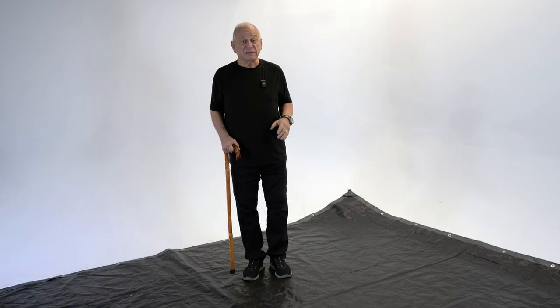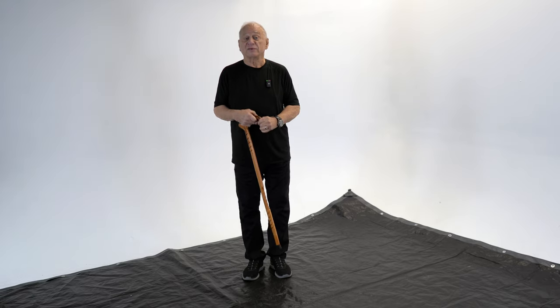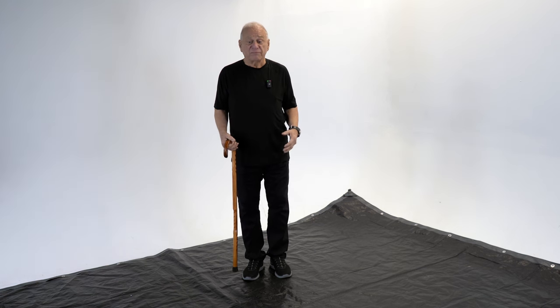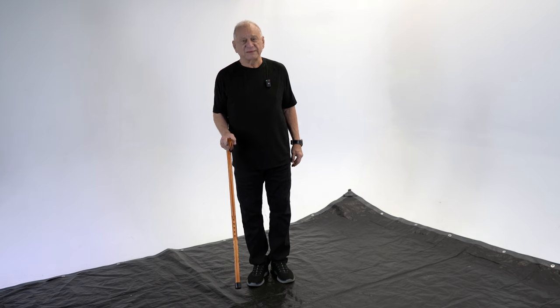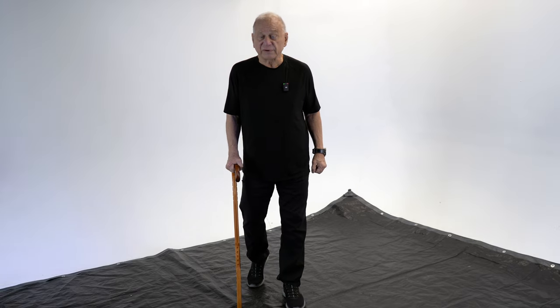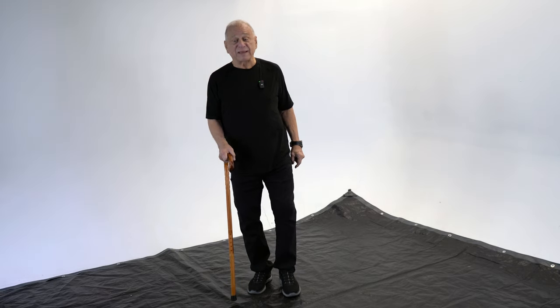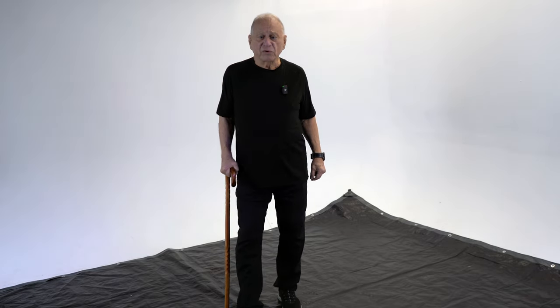When you're walking with a cane, obviously the weather and surface conditions matter. You're going to walk differently on dry pavement than in snow or ice. Never go faster than your environment allows you to walk. Always be careful. If my left knee is injured, I usually like to put the tip of my cane down just before my leg hits, so I'm testing to make sure it's secure. If you're on ice or snow, you're actually trying to feel to make sure that your cane is firmly planted before you put weight on your infirm leg. If you get in that habit, it's very comfortable and it should flow naturally. You shouldn't be conscious of your cane.